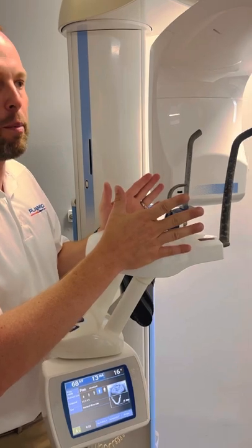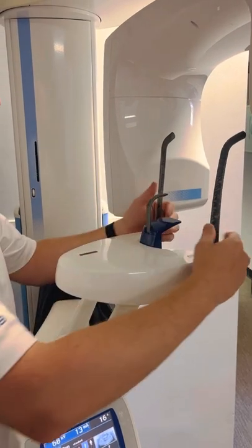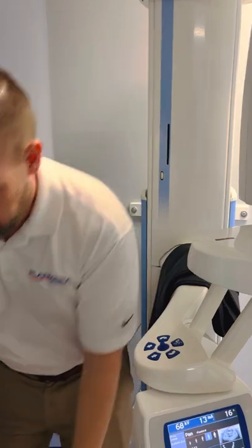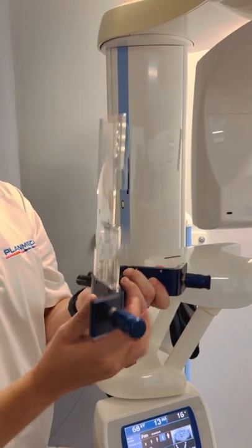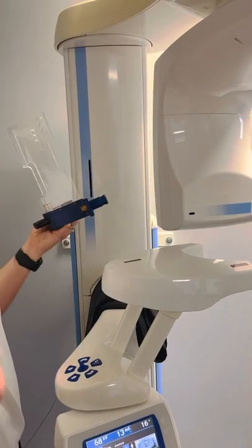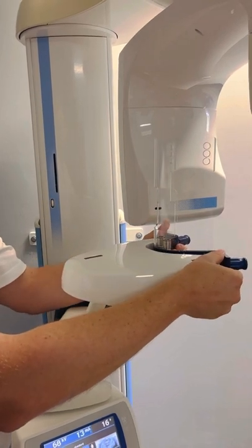This is set up for panoramic use — you'd close down the patient's temples to stabilize them and they use the bite stick. But for cone beam, the motor that closes these does not operate; we have a different way of stabilizing. The original way had no patient stabilization, so it was extremely important the patient stayed still. Nowadays we have a different setup that actually stabilizes the patient by squeezing on the left and right temples. Movement is a major problem with cone beams — if they move, it wrecks the cone beam.